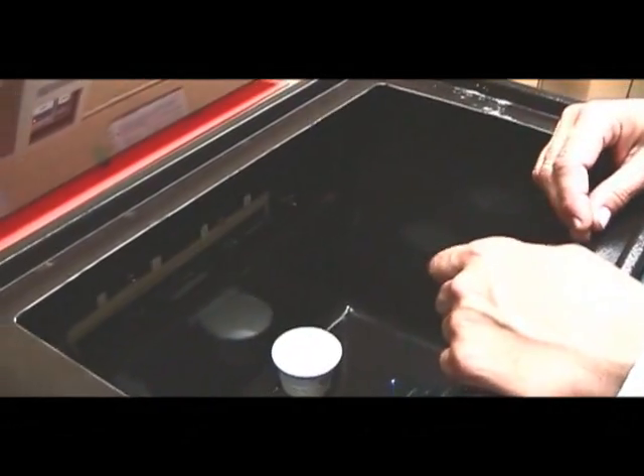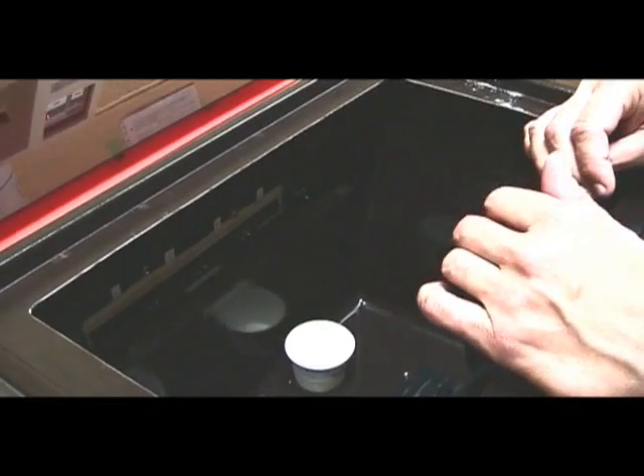Now I'll separate the garbage. The foil goes here in the foil container on top of the processor, and the garbage goes below in the garbage can. And that's it — those were the little pointers I wanted to add to that film processing sequence.